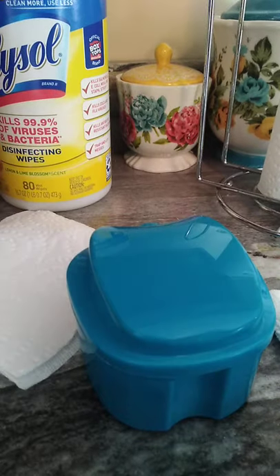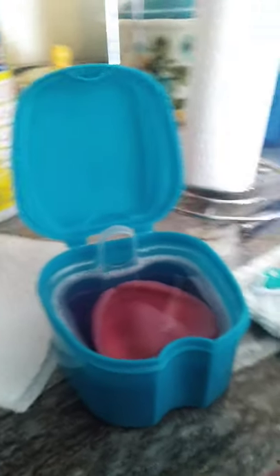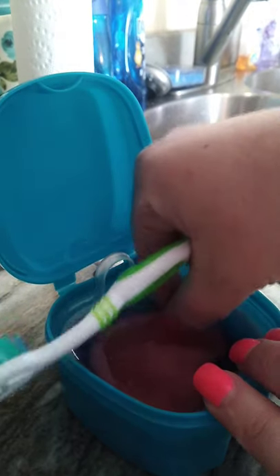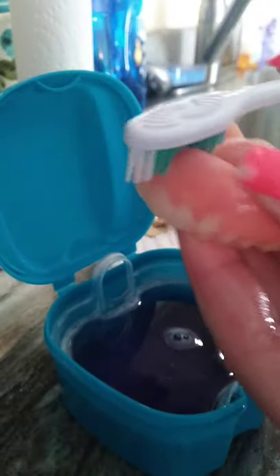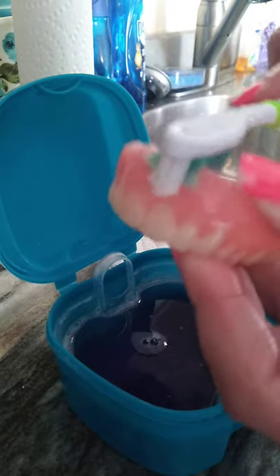So it's going to sit there and soak just for a second, because I already soaked it originally. I just want to keep it clean. And what I do — I'm going to show you guys — you can just flip it and clean your denture really good, because I don't know what's on that emery board — germs, everything. I am very OCD when it comes to my mouth. I prefer everything ridiculously clean. You never know what goes in there. So I'm taking my brush and literally putting it into my frenulum area, cleaning it out, smoothing it out. Hopefully it works. If not, I'll do a little bit tonight or tomorrow. Not a big deal, but you have to work with what you have.